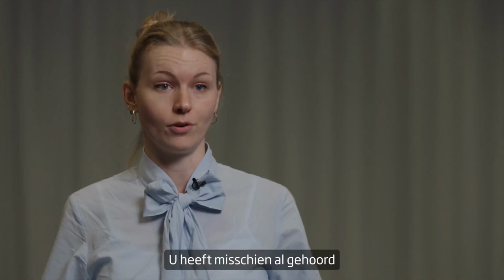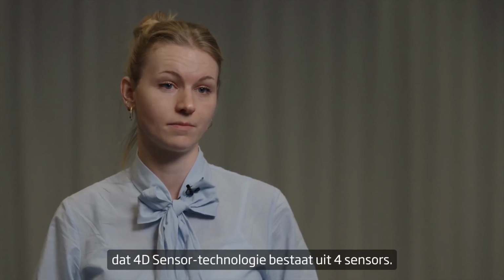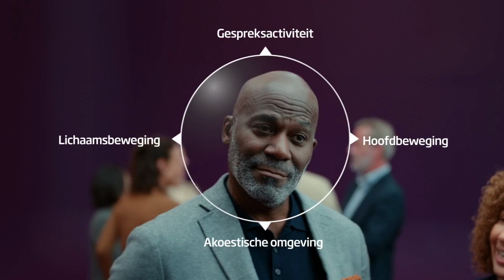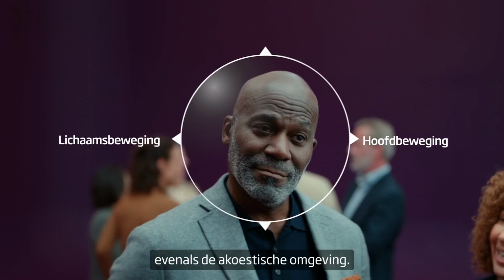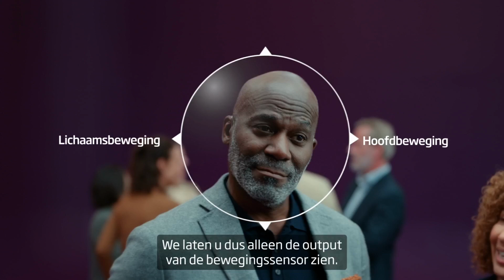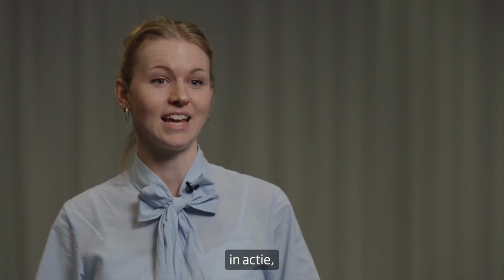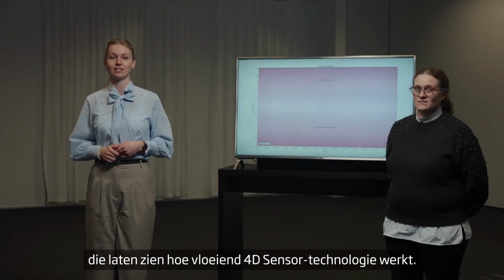You may already have heard that 4D sensor technology consists of 4 sensors. But with the purpose of providing a clear demo for you, we have deactivated the conversation activity and the sound environment. So we only show you the output from the motion sensors. What you just saw is the world's first user intent sensors in action, truly demonstrating the seamlessness of 4D sensor technology.